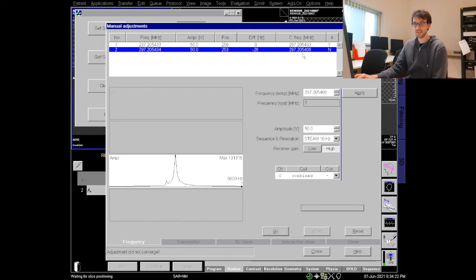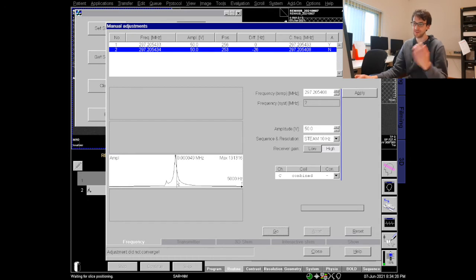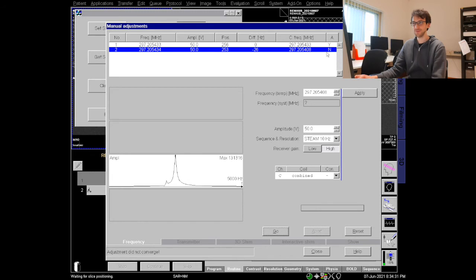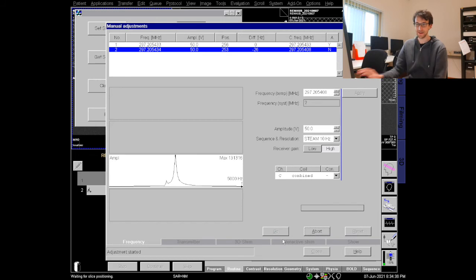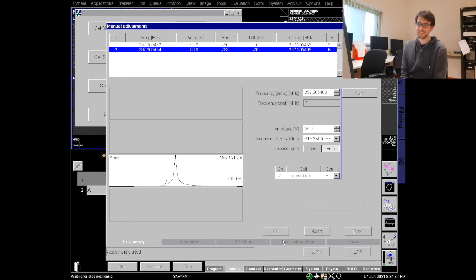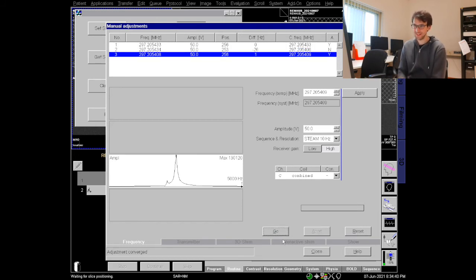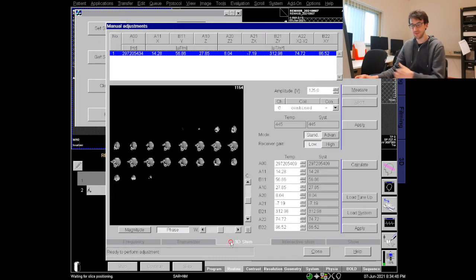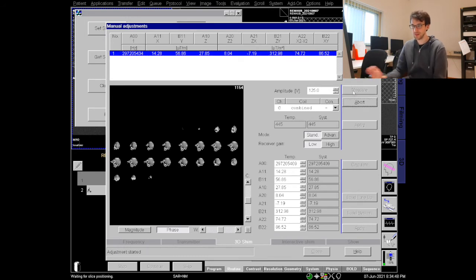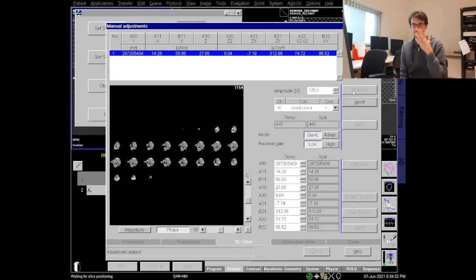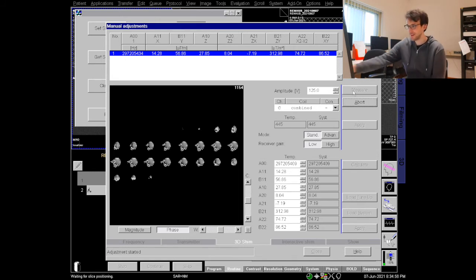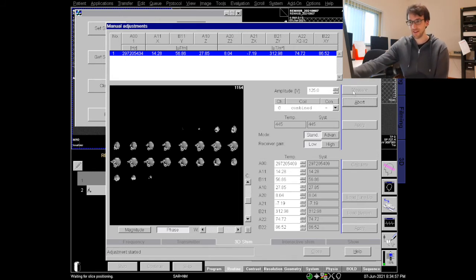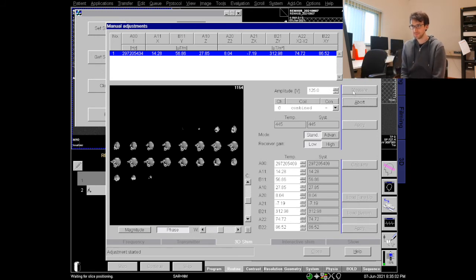So now I try to measure the frequency and as usual for the first time after you did the field map it did not converge and this is also visible as the little N over here. Usually when that happens you don't need to panic, just click go again and usually the second time it converges already. So now it converged, we have a peak and we have a yes over there. So now we can continue with our iterations and go to measurement. As I said, always go, measurement, calculate, apply and set. This is just the circle. So again we are acquiring a field map right now as you can hear. This takes a second.